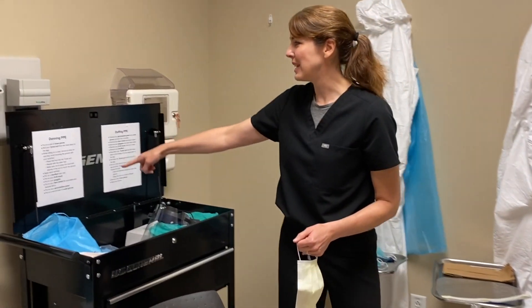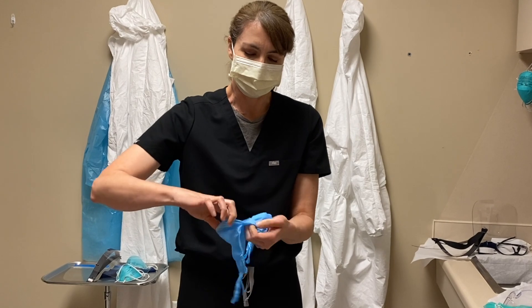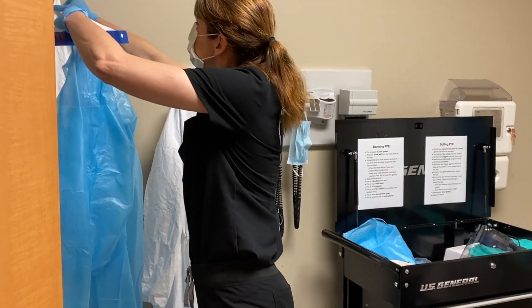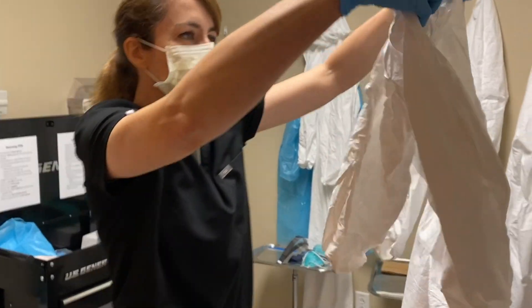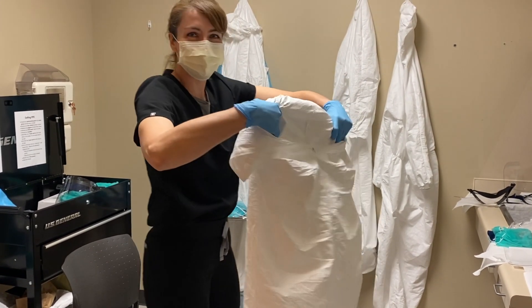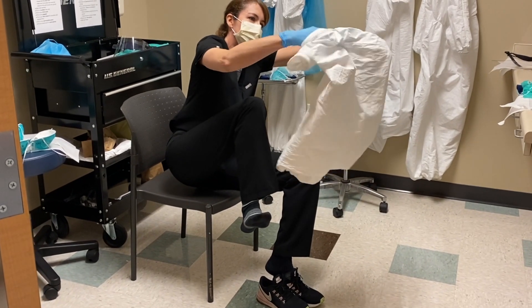They have a great list of what we need to be doing and it's really helpful to follow that. So I'm going to put my mask back on and first put on my inner pair of gloves — I choose a size small. We're supposed to use the same Tyvek suit all week unless it gets really soiled. What we do is roll it up so it never touches the floor. I can't stress how hot all this PPE is, so some Tyvek suits need to be changed simply because we've sweated in them so much. I take my shoes off and continue to roll up — I don't ever want my suit to touch the floor if possible.